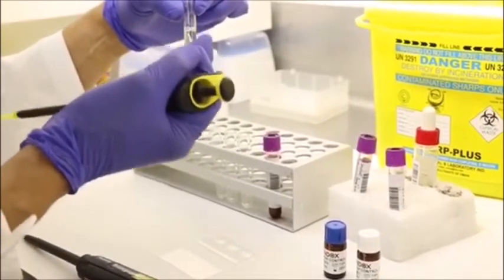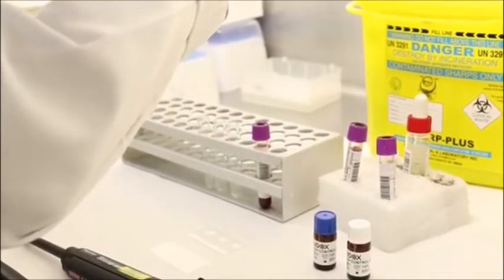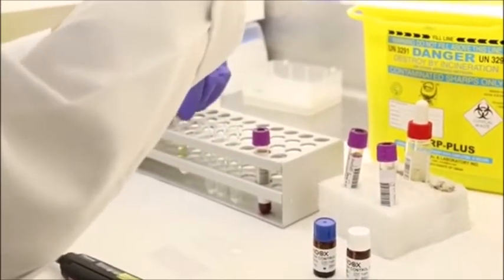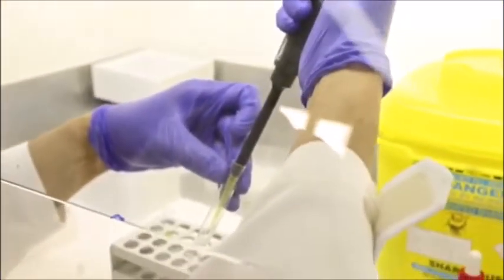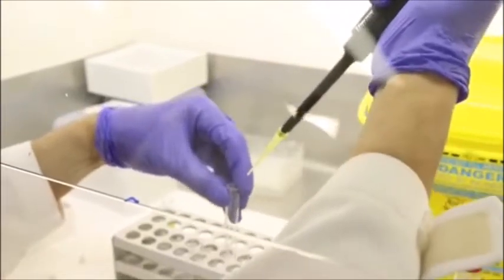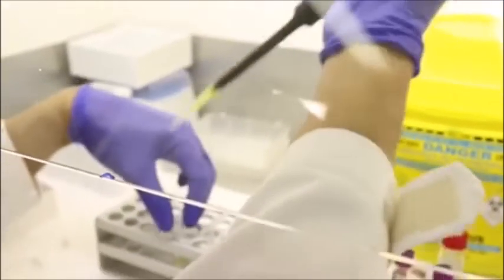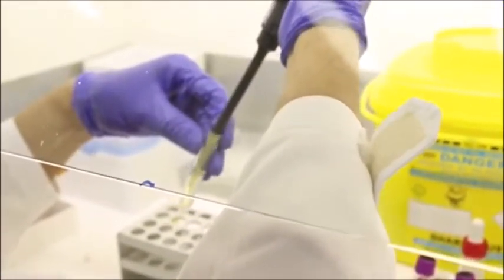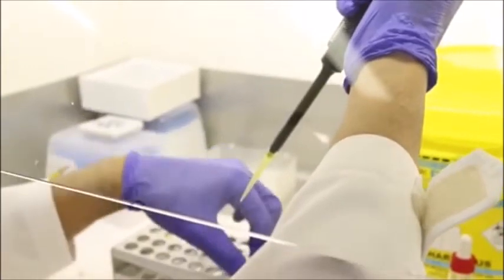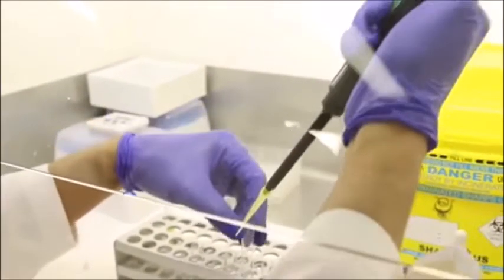So these are the necessary cofactors for the glucose-6-phosphate dehydrogenase enzyme, in case there is enough activity or presence or absence of the G6PD enzyme in the sample.